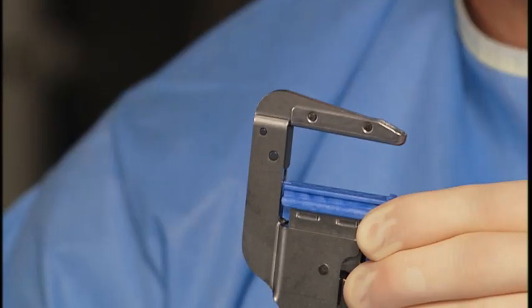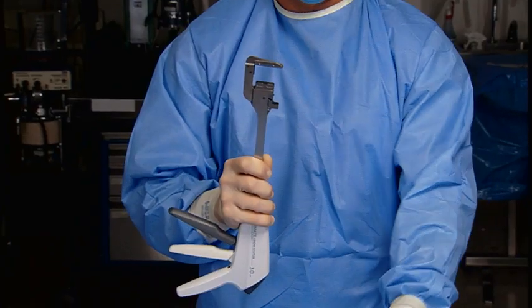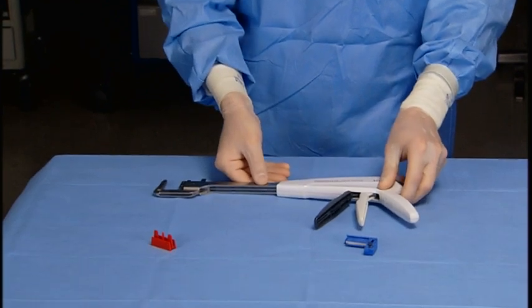Remove the used reload from the instrument. Grasp the top of the reload and lift upward, unsnapping the reload from the jaws. Properly discard the used reload.